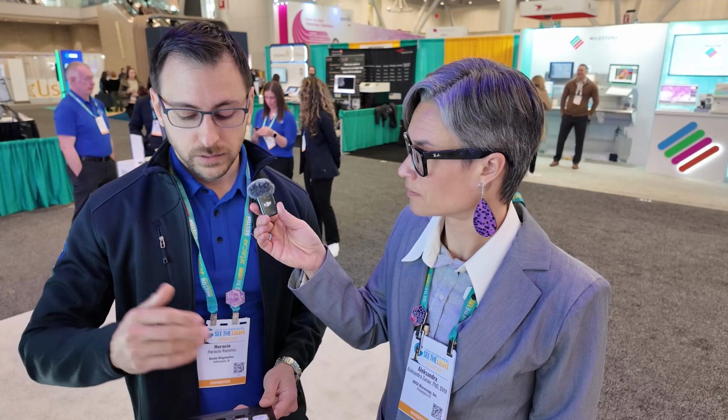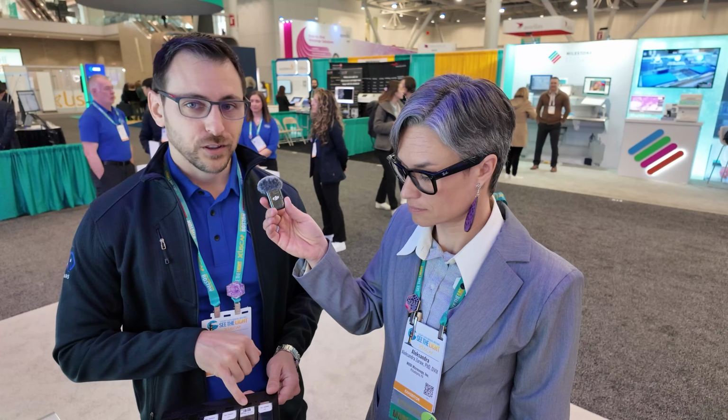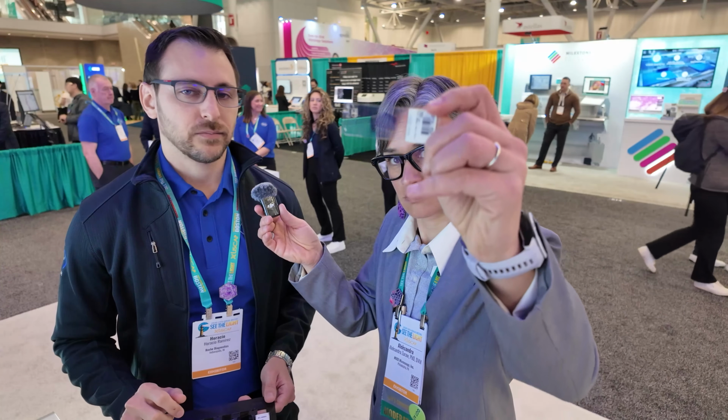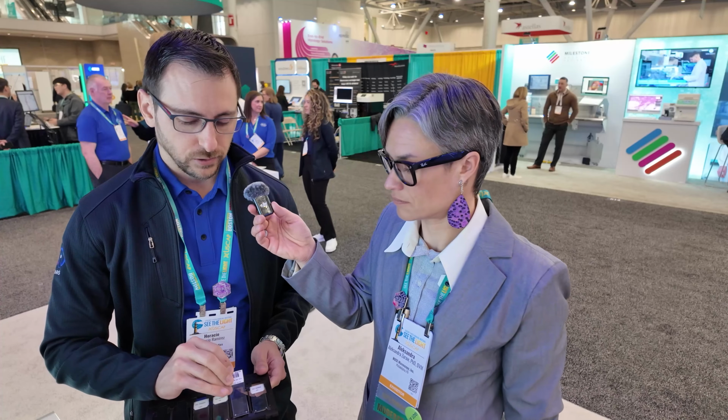In a fully automated workflow, the idea is, first of all, the system will be connected to your LIS, Laboratory Information System. The scanner actually has a barcode reader inside. So when you put in the tray, it will go in and pick up the barcode of the slide, which I'm showing. That's a regular barcode, but we can take QR codes and stuff like that.